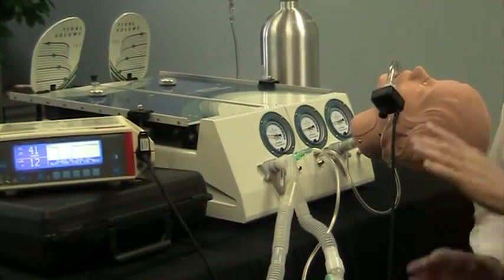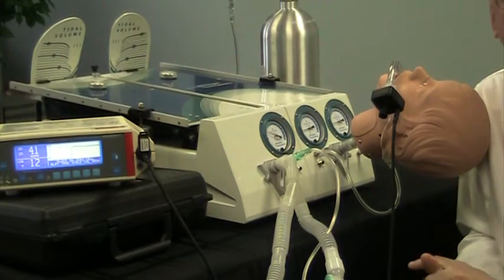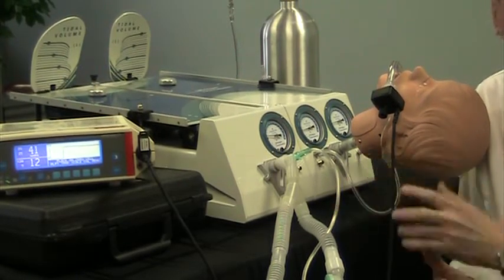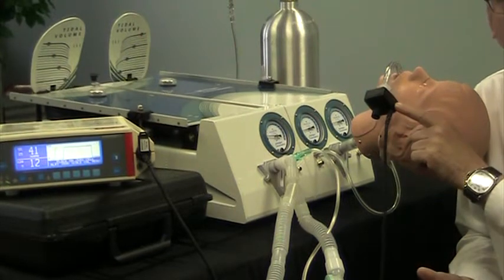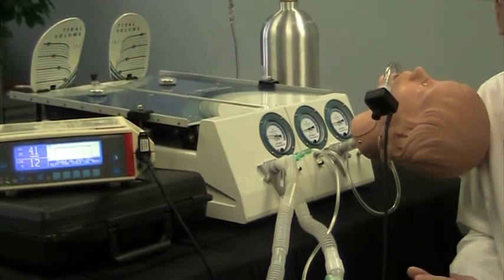In this setup, a frequent question that we get is: can I somehow get CO2 into the lung and then measure it on an end-tidal CO2 monitor? So this is how you would do that.